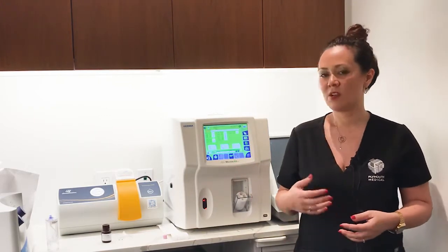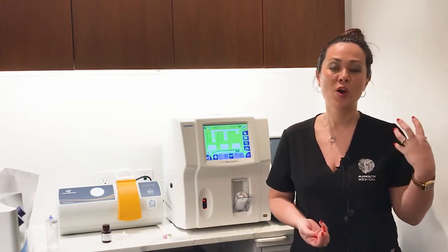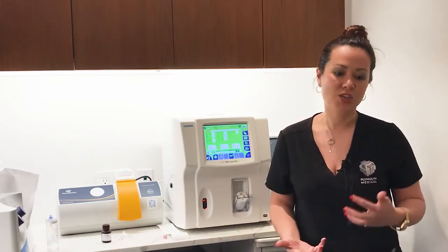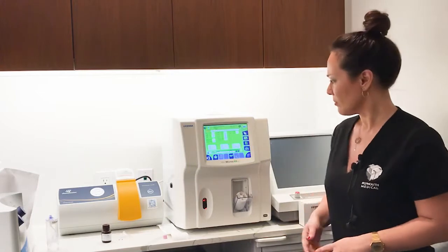We find that this is a very good device for point-of-care characterization of whole blood or baseline blood and final PRP, so that you can quality control and establish a dose, establish your level of contamination in white cells and red cells, and also calculate your X-factor quite rapidly.